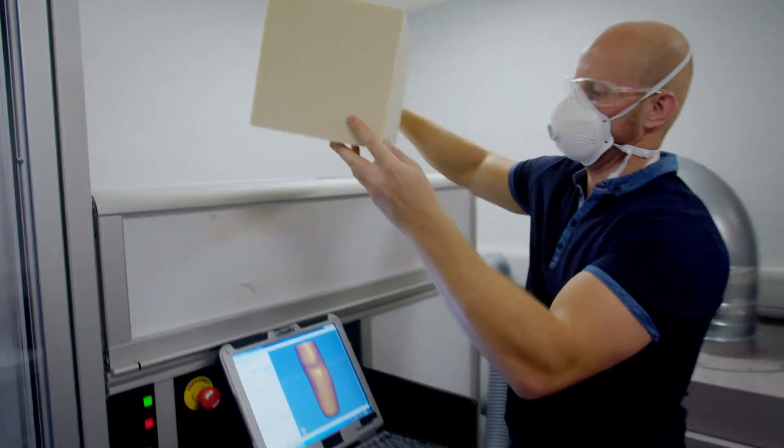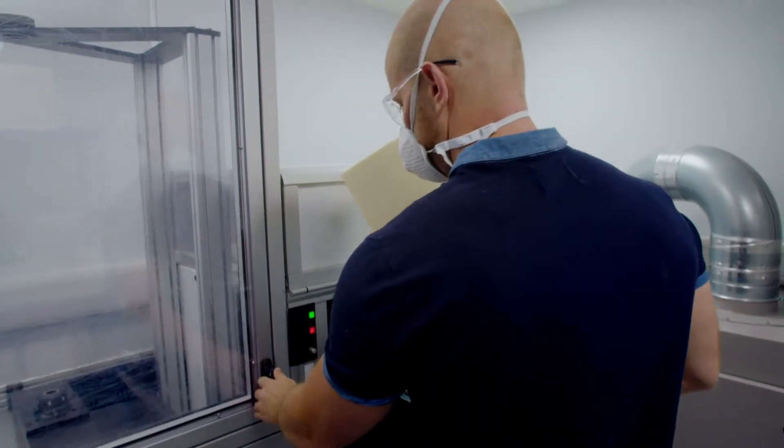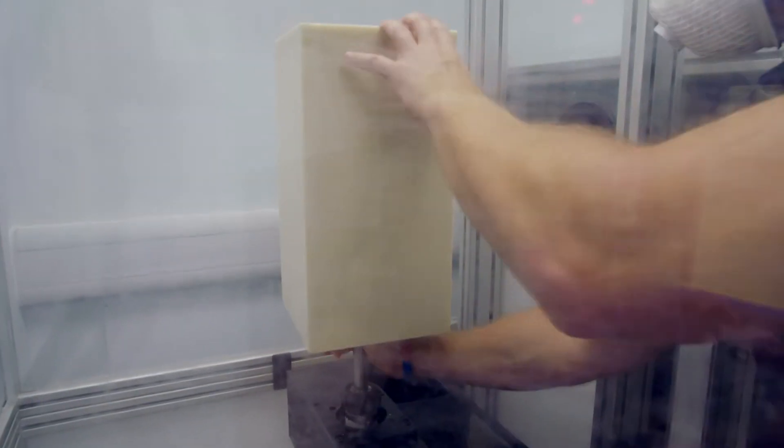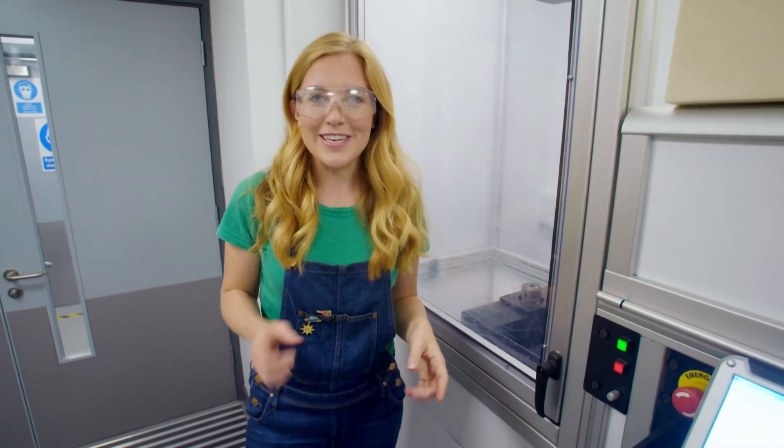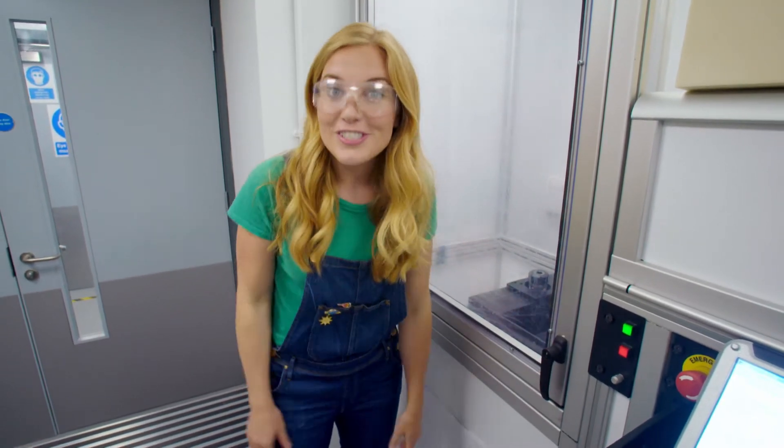It's Adam's job to set the block ready for cutting in a machine called a 3D carver. But it can take quite a long time, so I'm going to use my special time-lapse camera.